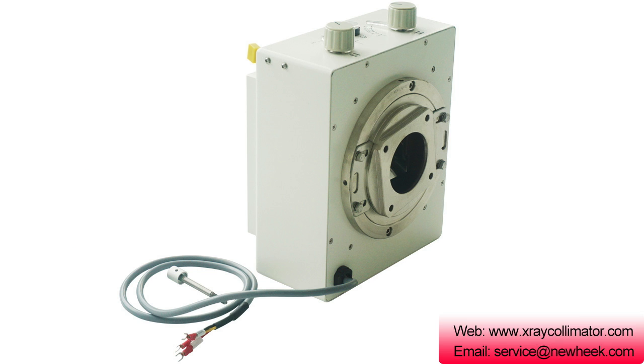Working power: 12 volts AC, 100 watt. Lowest safe voltage specified.